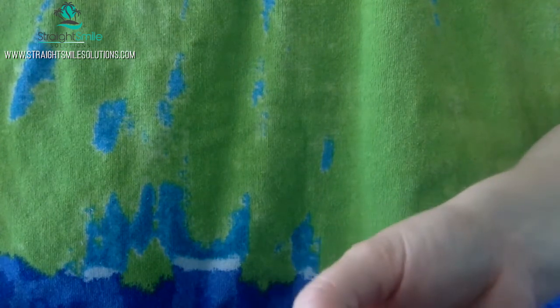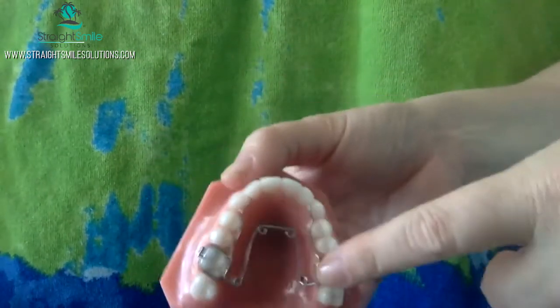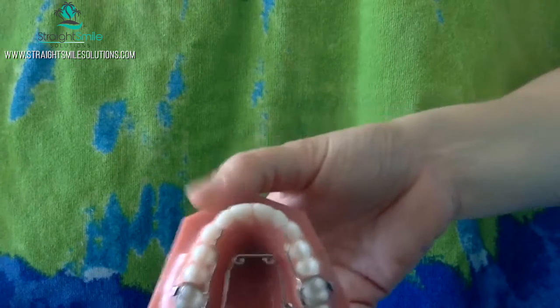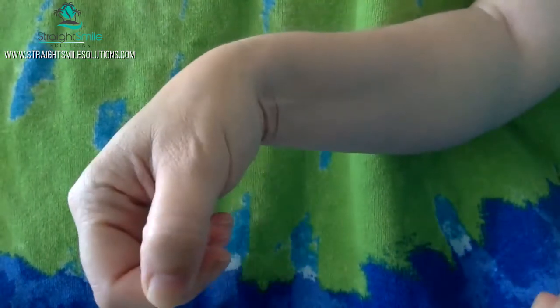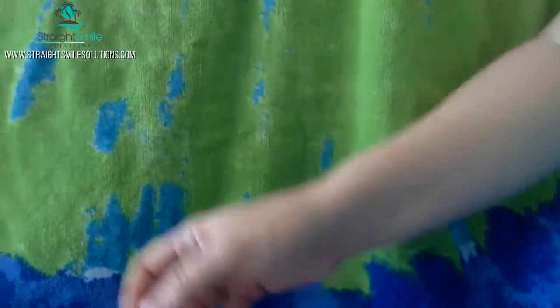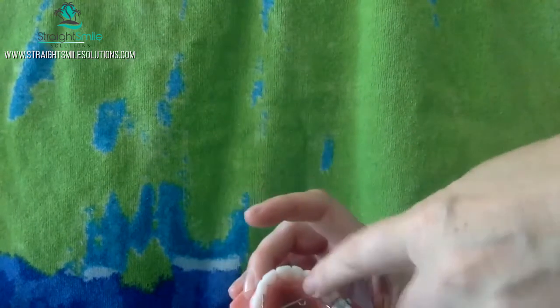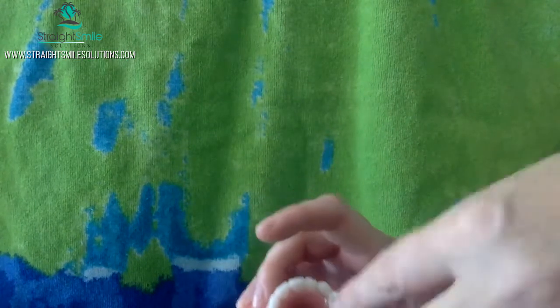They may pre-expand it for you, so figure out what you're getting. This one is actually cemented on here right now, so I can't pull it off. But if I was able to pull it off, I'd grab it, hold the bands each in one finger, and pull gently until I got that four millimeters of expansion. Some people will use a three-pronged plier to do it, but for me the pull technique works better — evenly pulling and getting that four millimeters of expansion both here and here. If you want more expansion in the anterior region, you can pull up here a little bit more.